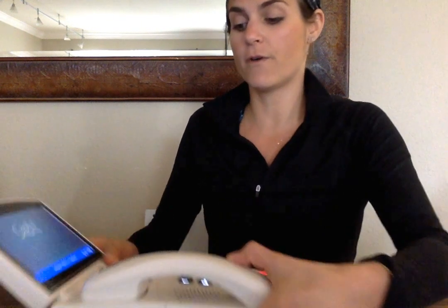You're able to contact someone 24/7, and everyone's always within the US, which is really important for people who have hearing loss because they need people to speak as clearly as possible without accents. So that part is very, very helpful.